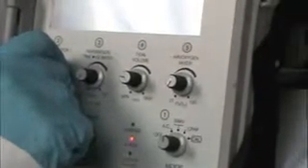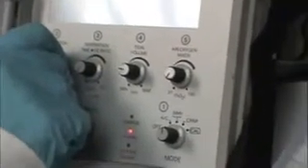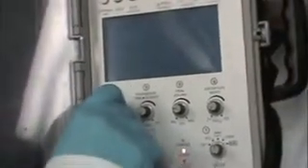So the next thing we're going to do is set a ventilation rate. Generally, most adults, we're going to ventilate between 12 and 20 breaths a minute. Children, we're going to ventilate a little faster, and very small children are going to go even faster than that. So the same ranges you would breathe for someone by the ACLS or PALS criteria, you're going to ventilate them the same with the machine here.